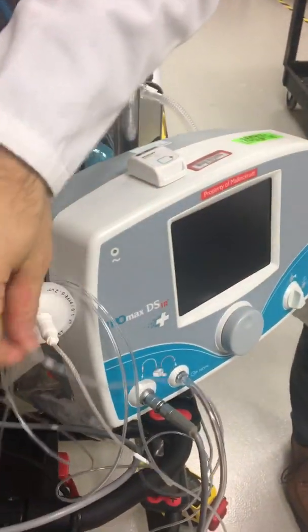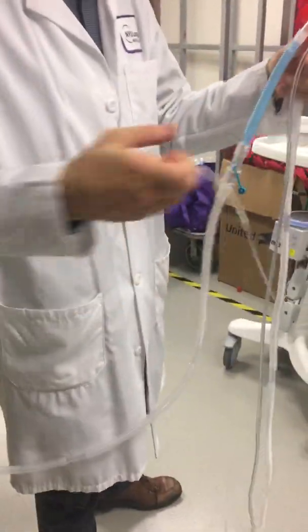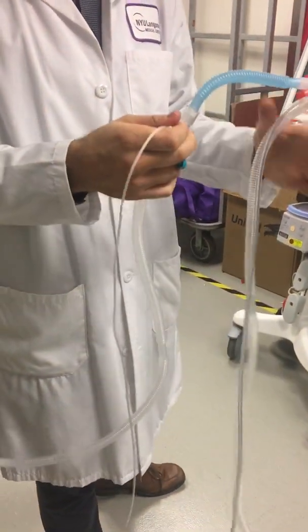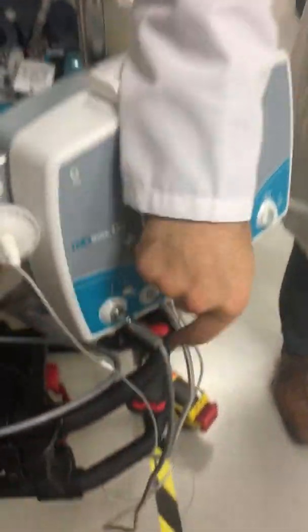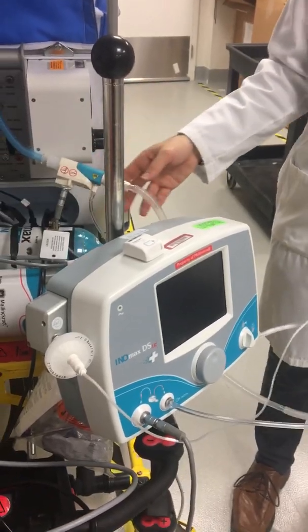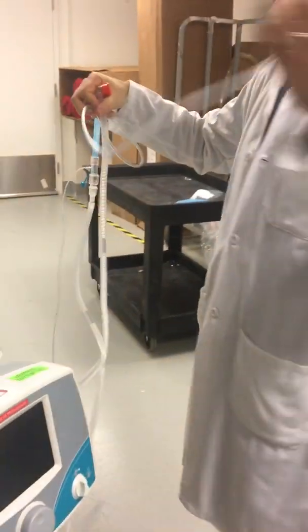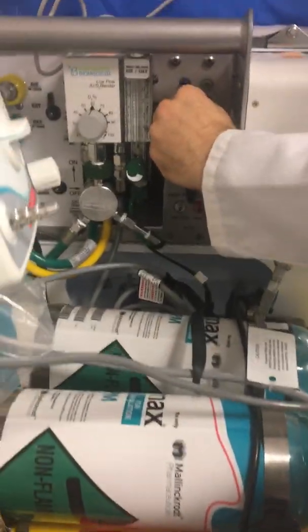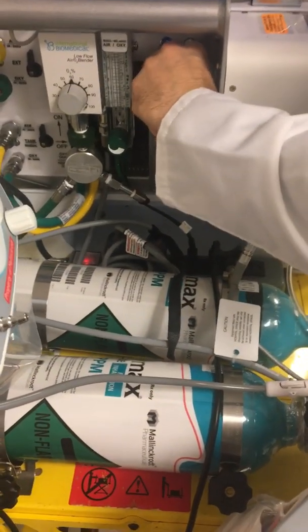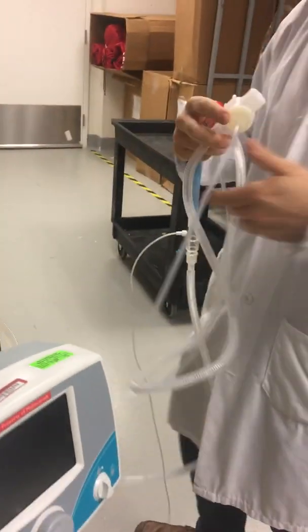This is our nitric oxide typical system. Our sample line will connect right into here, so now we're sampling and delivering from our injector module cable and injector module tubing up into the injector module — delivering and sampling nitric oxide. We'll finish connecting the rest of our circuit: the pressure line up and over, and our expiratory line.